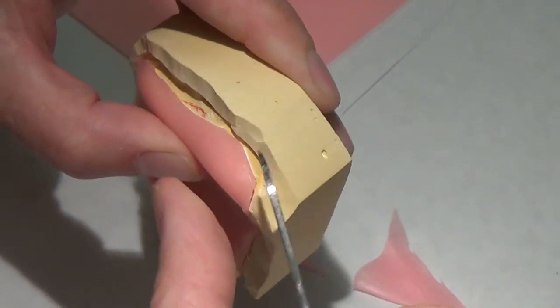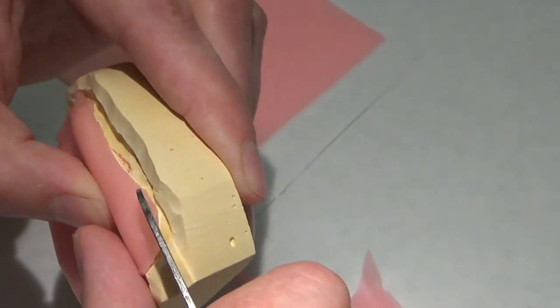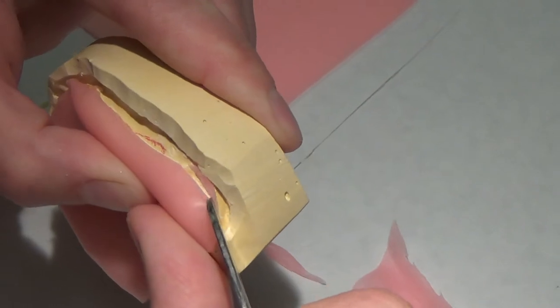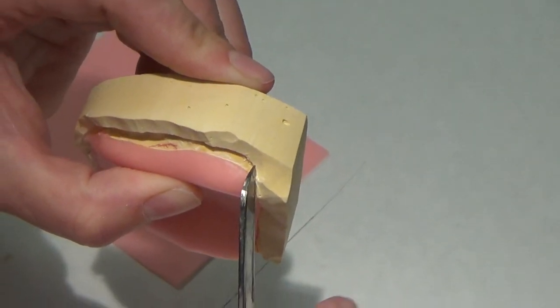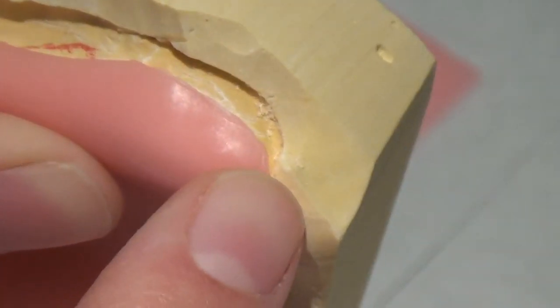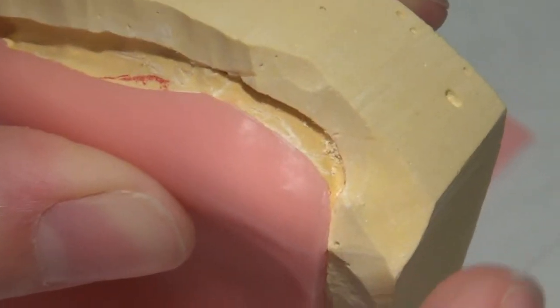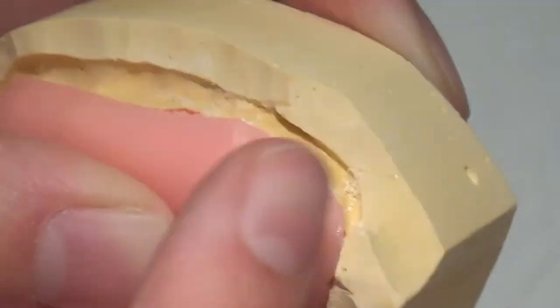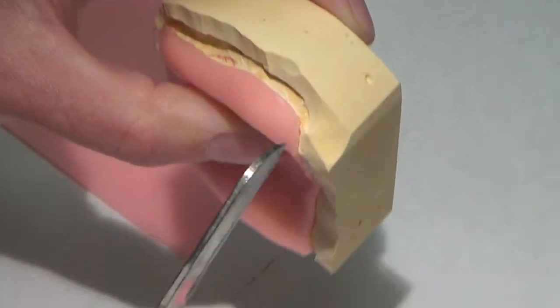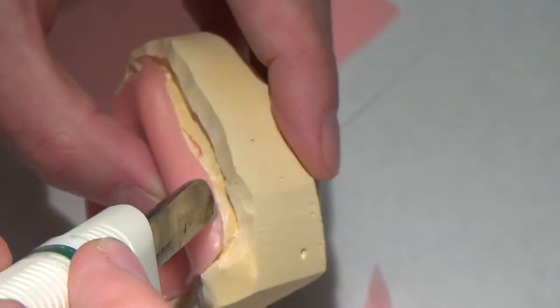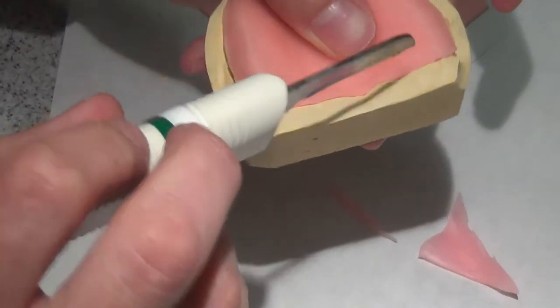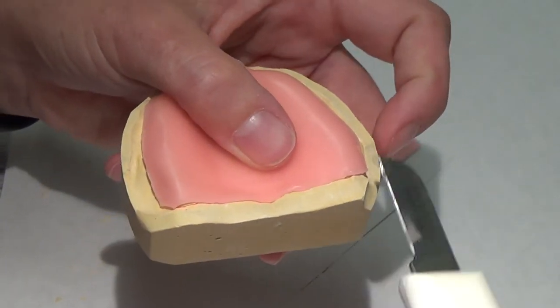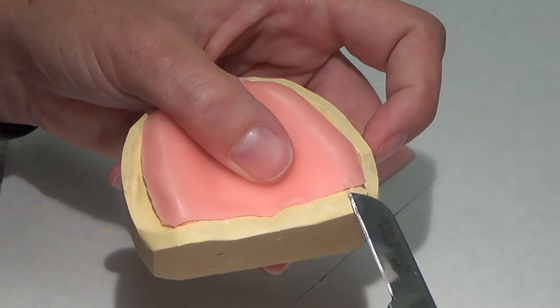So length of this tray is different than height or depth. It's really important that I maintain this distance here so that I have the full length of the tray that I need. We're not just talking about depth when we're talking about this posterior border. Not just talking about the wall that is directly below this level down here.